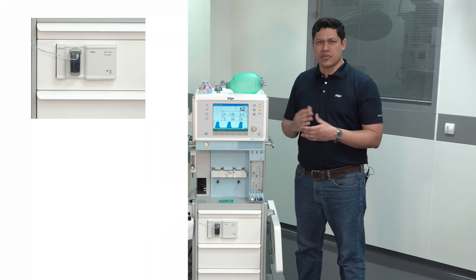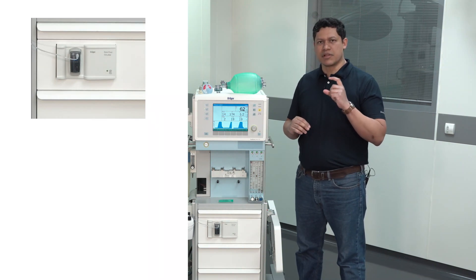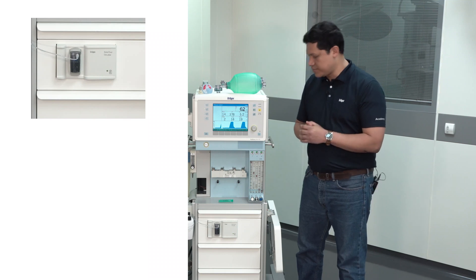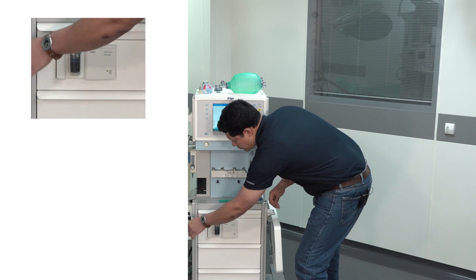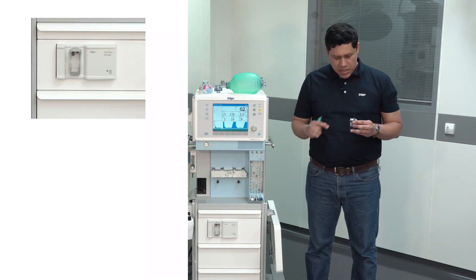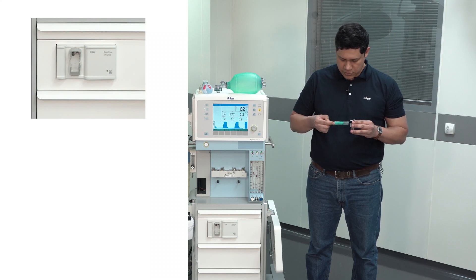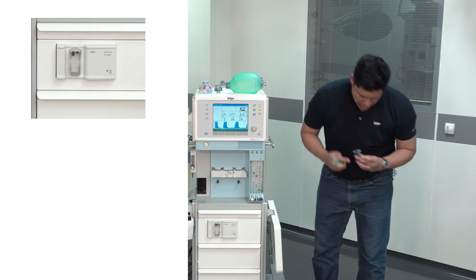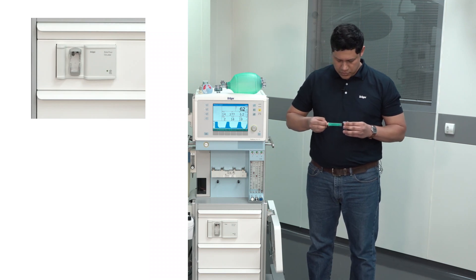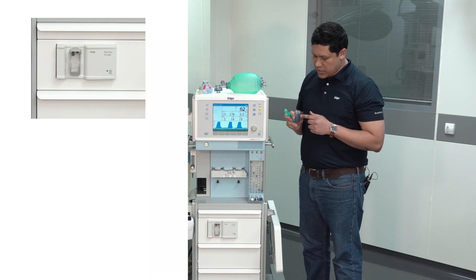The gas measurement water trap is another element that should be frequently checked. To do so, visually inspect that its water content has not reached more than 50% of its capacity. If it has, you will need to drain it. To do so, first unplug the sample line, then take the water trap out and use a regular syringe on the lower color port to drain it. You may need to repeat the process if there is still water remaining inside. Then place the empty water trap back in the port.